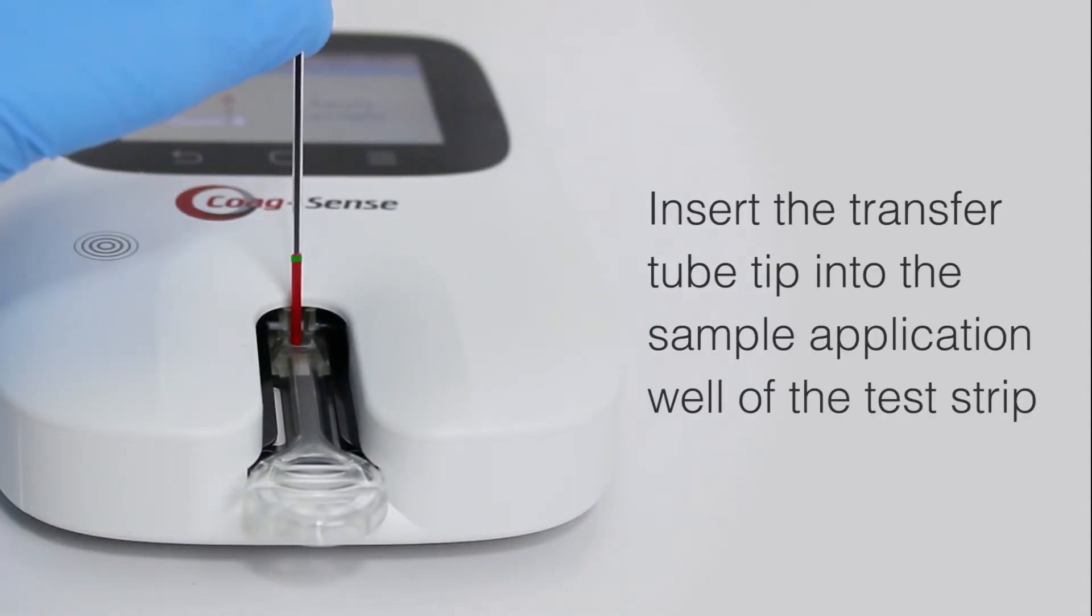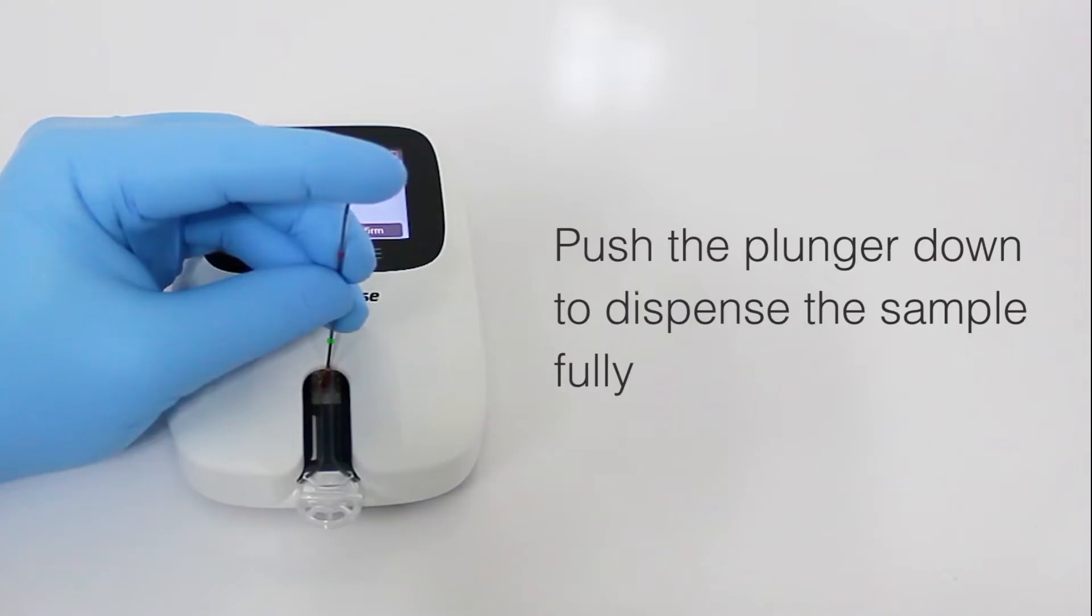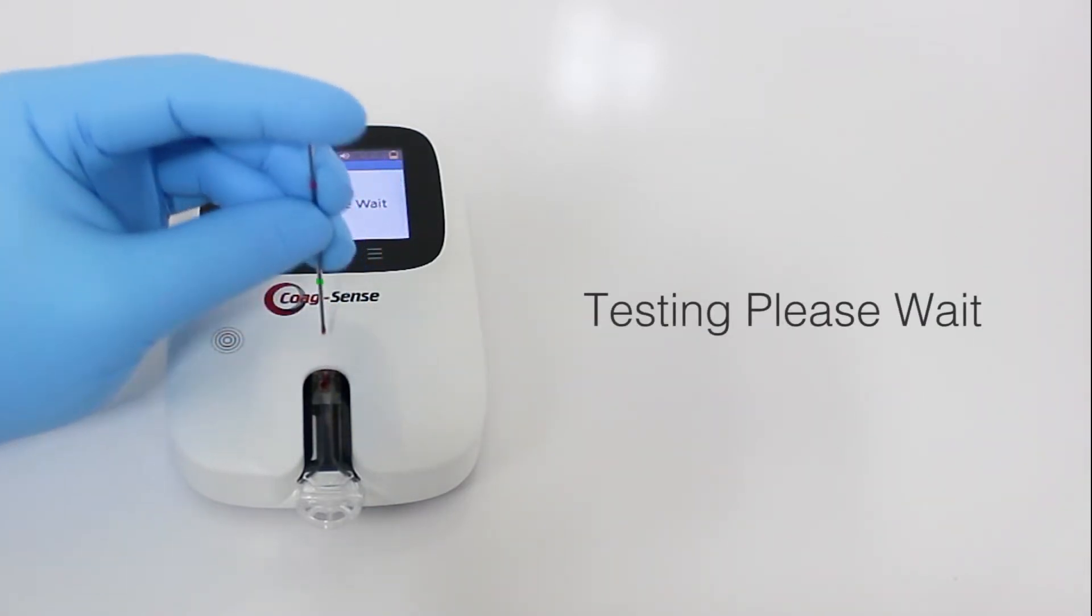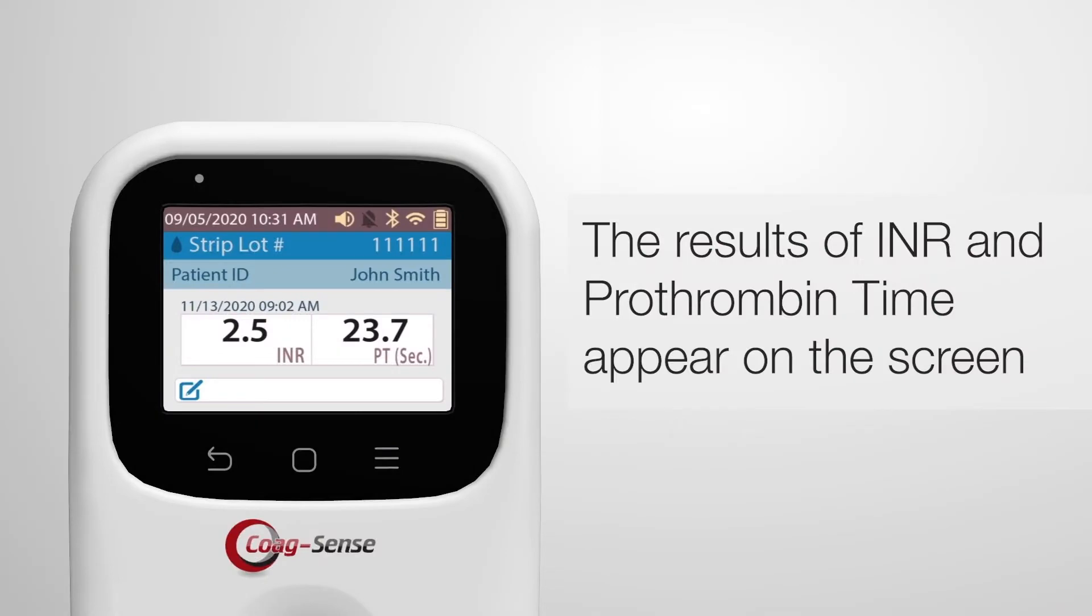Dispense the sample from the transfer tube onto the test strip. Wait for the results, which will display on the screen.